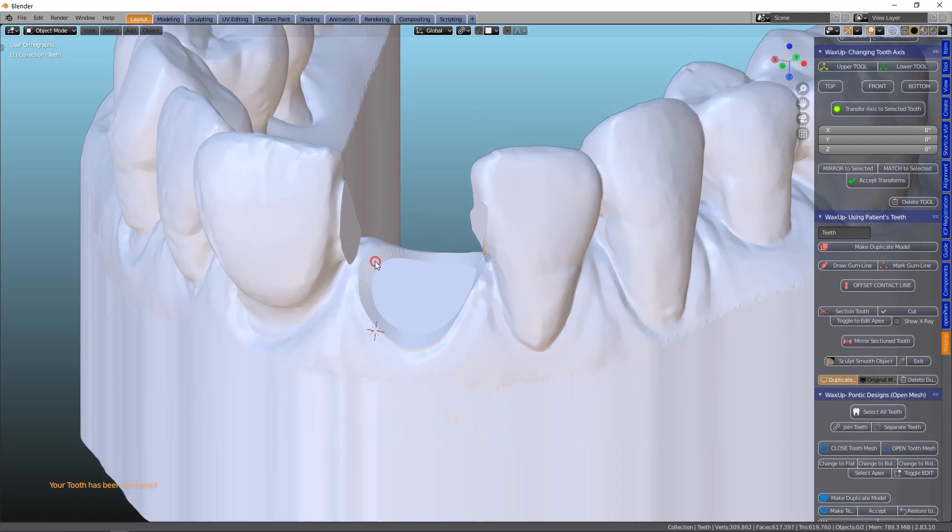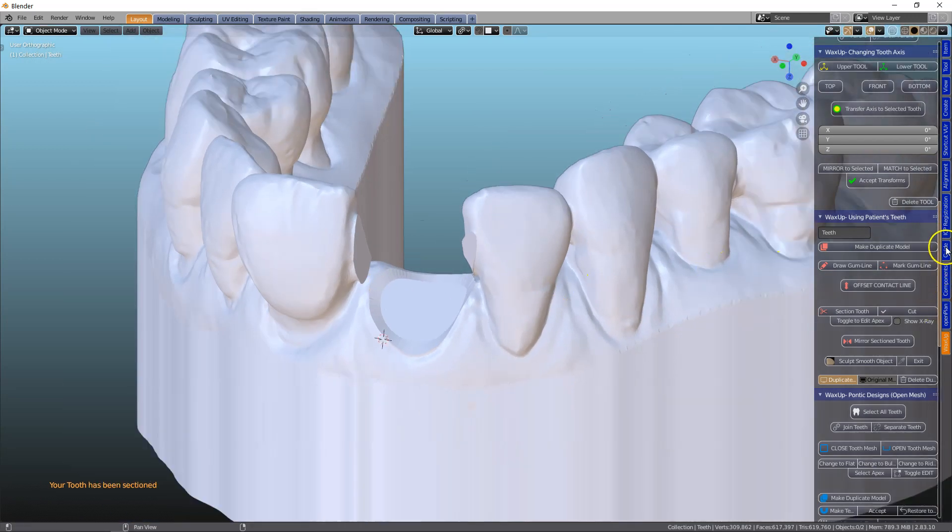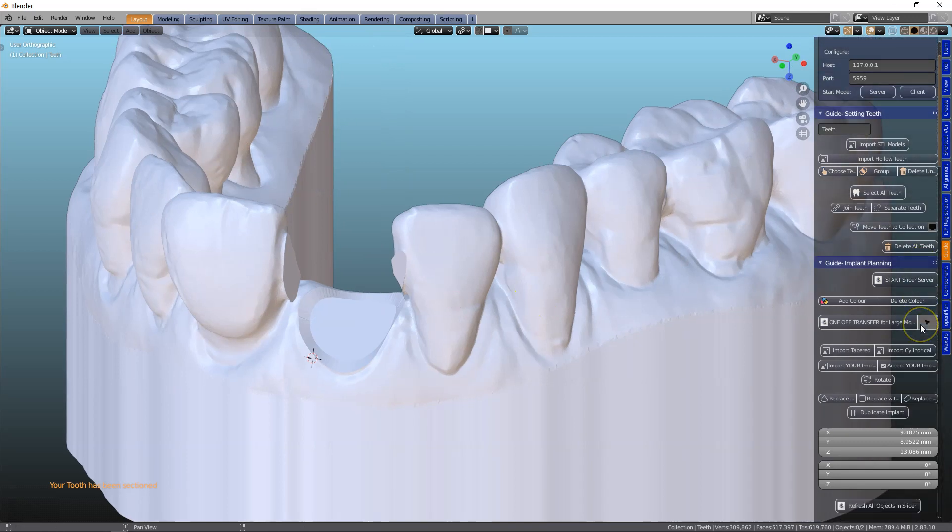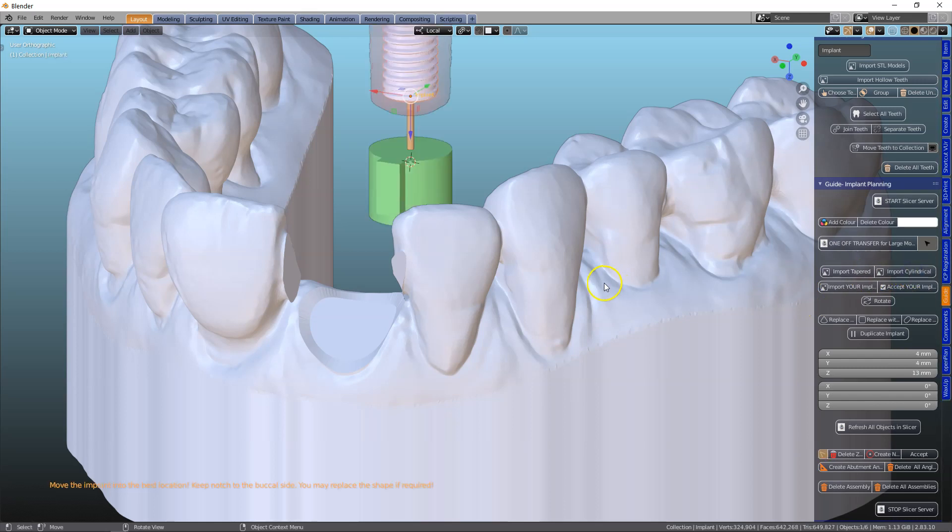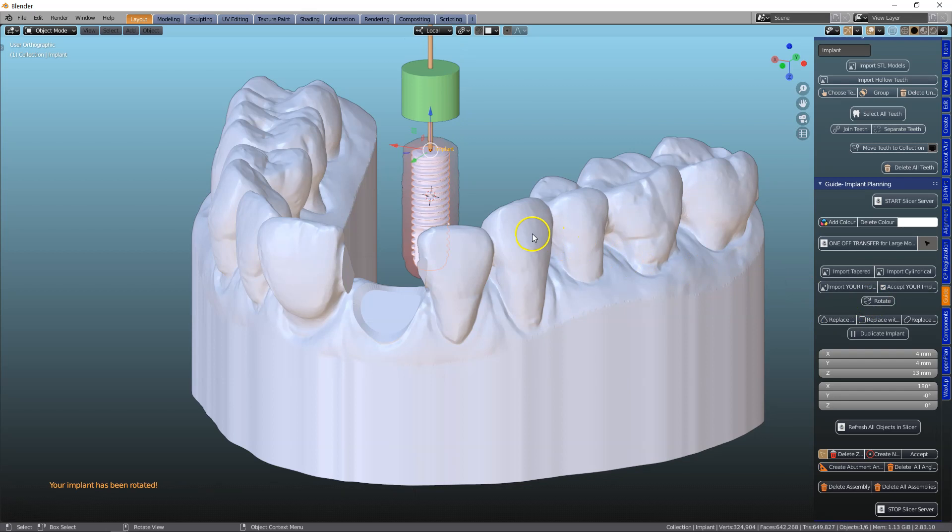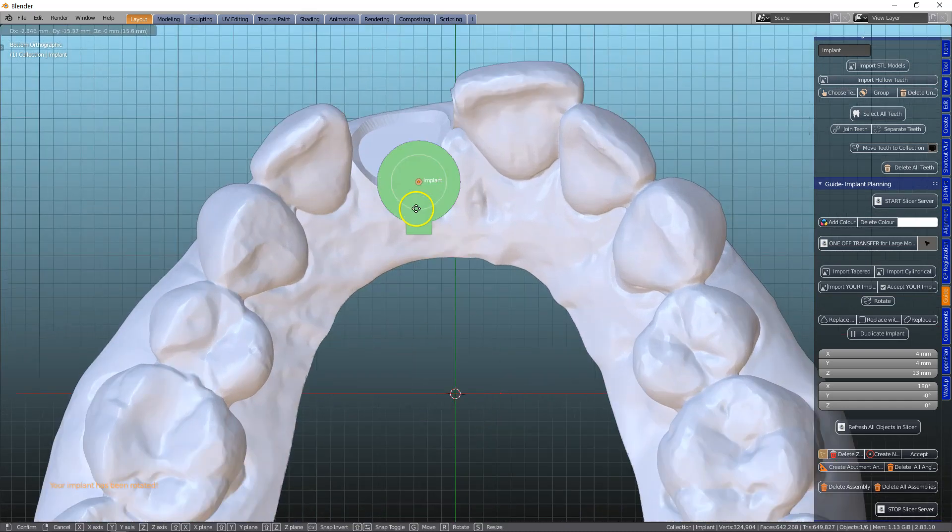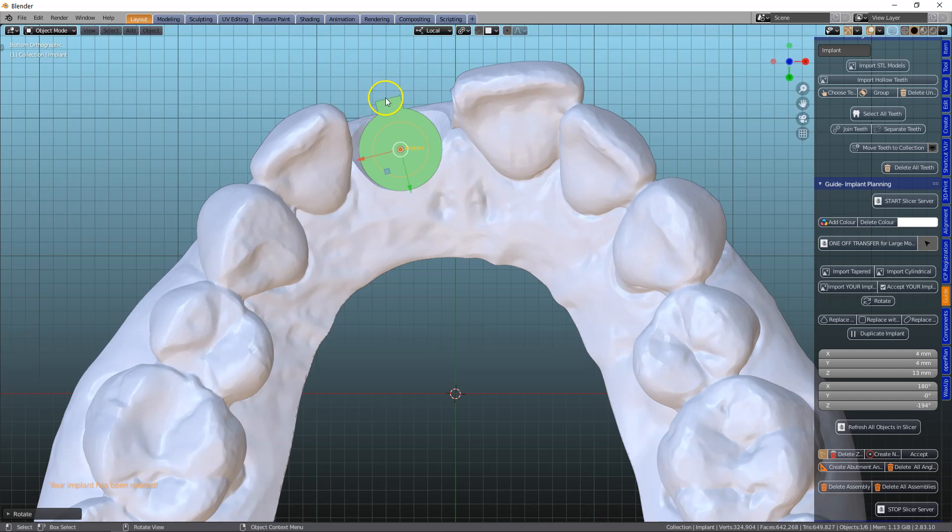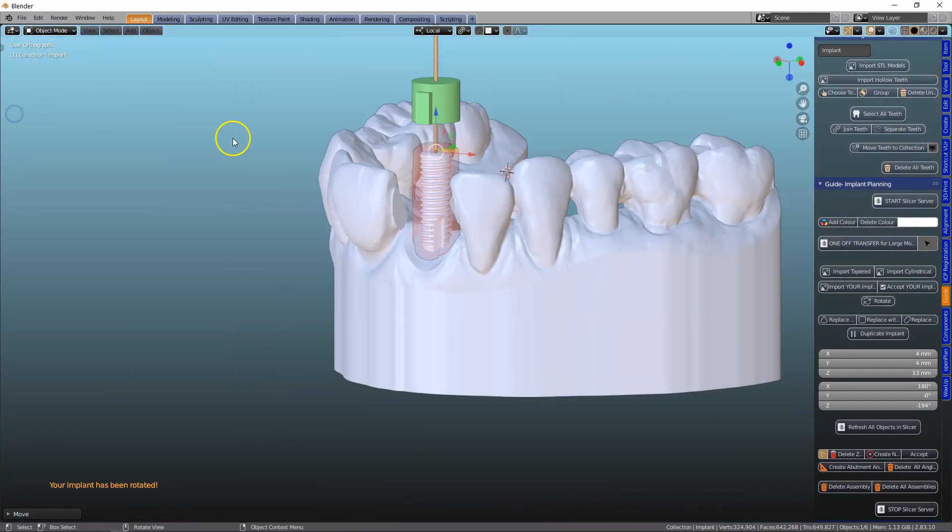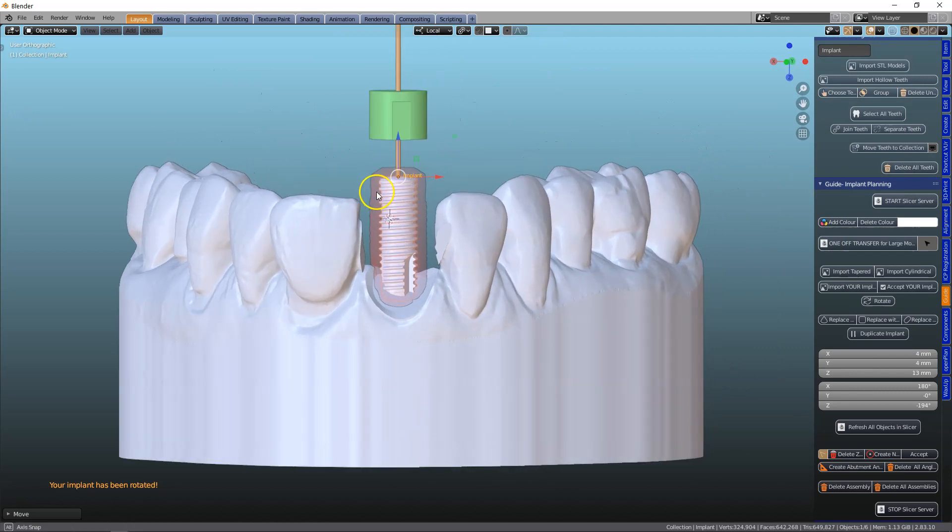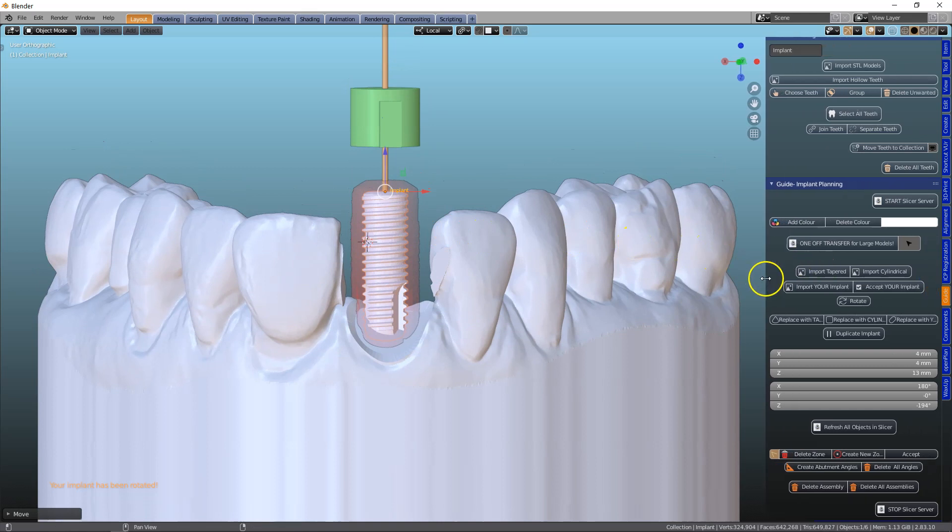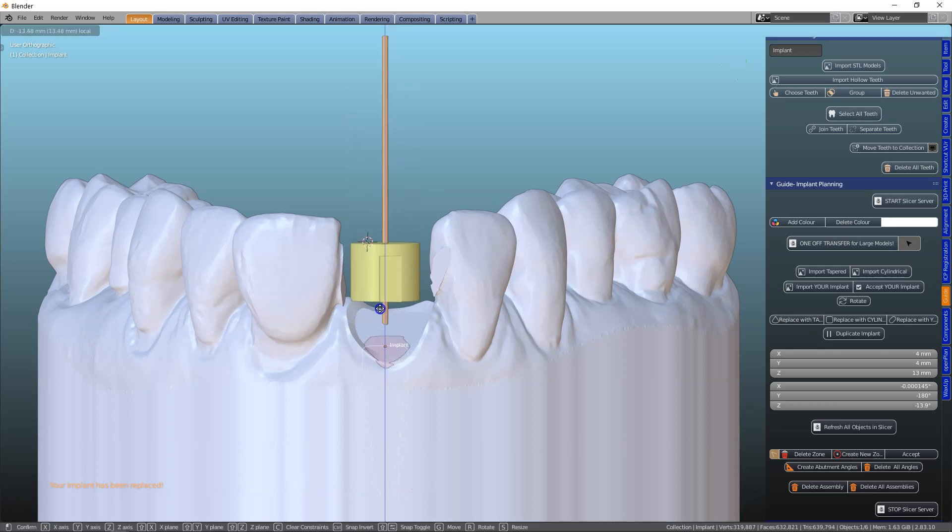So let's bring in our implant. I'm doing this without a DICOM because it's a hypothetical example only. So I'm going to bring in a cylindrical implant, rotate it, view it from the bottom up using the G key and the R key. Something like that. Initial placement. Let's bring this down. I may want to swap this for a tapered implant rather. There we go.